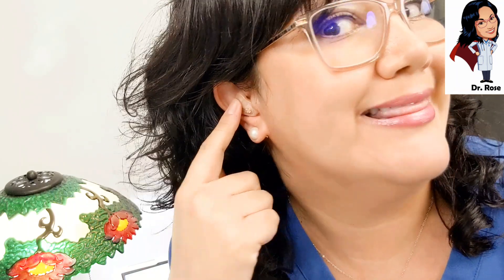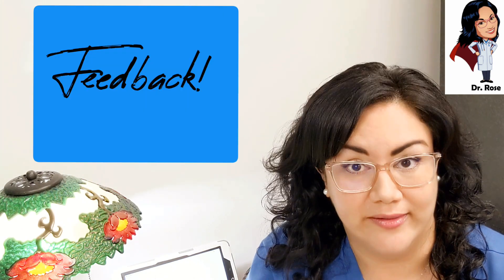Backtracking to fit — there are basically two types of hearing aids. You can have a behind-the-ear style or an in-the-ear style. In-the-ear styles are custom fit, made only for the person whose impression was taken. This one is not made for my ear, and you can see it's protruding a little bit. Something uncomfortable and not fitting your ear canal properly will give you feedback — lots of squealing. There are software adjustments, but that sacrifices your sound prescription.